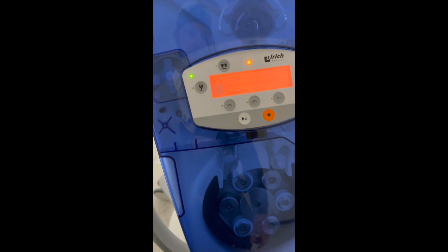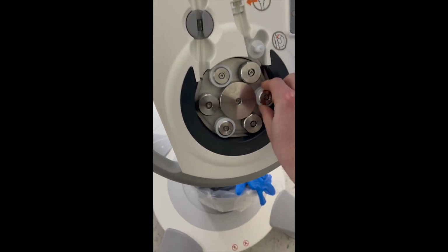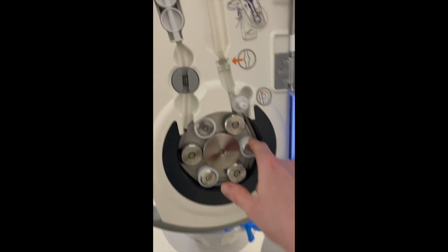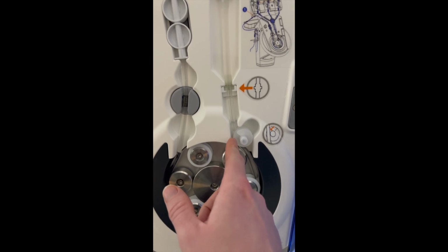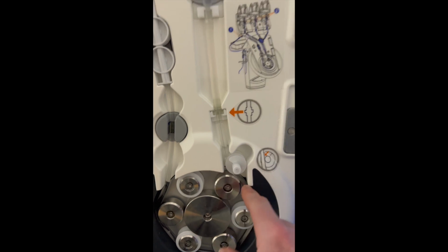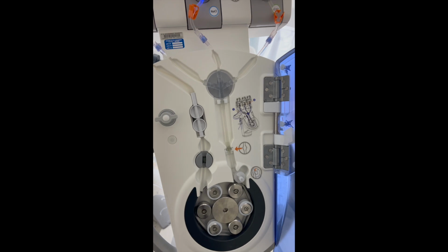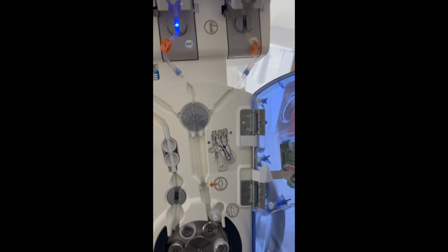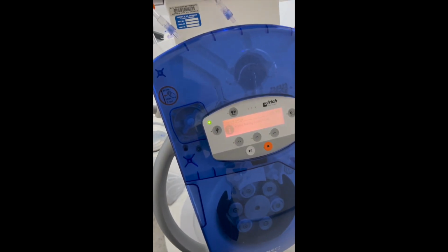If we just want to open it, and we're able to pop it open. So if you do need to come in here, these should be loose, and it'll tell you as well how to make sure that this is inserted. Make sure that the tube lining's right about here, and it'll go ahead and clip in, and it'll link it all the way through here and get it running. And then once you're done, all you have to do is close it, press real hard, and then once you do, it'll start running it again.